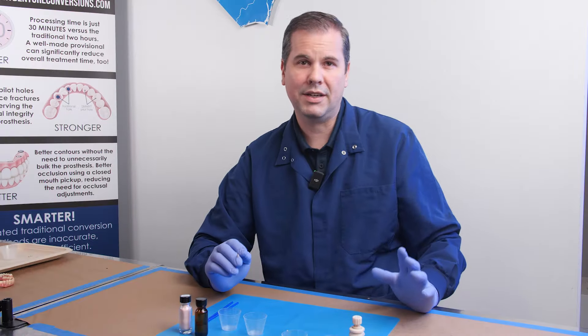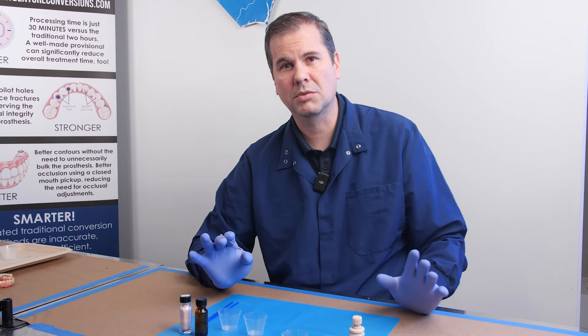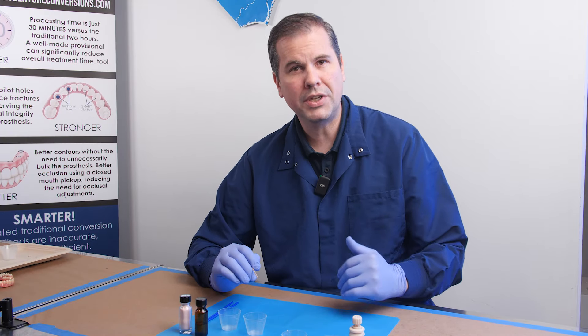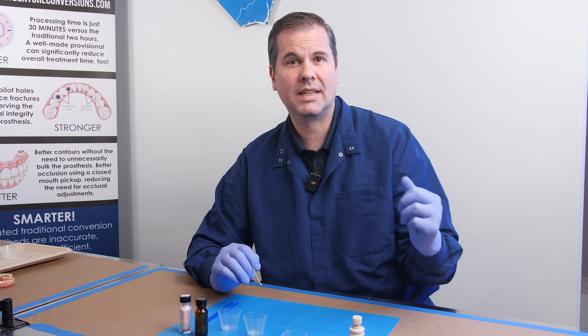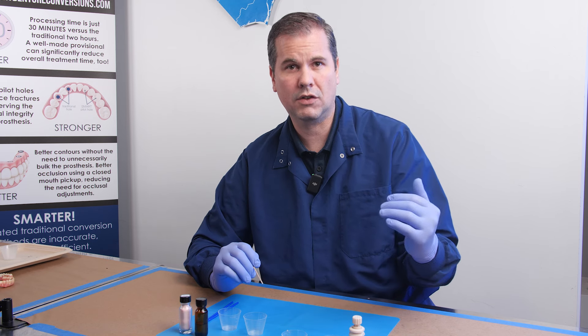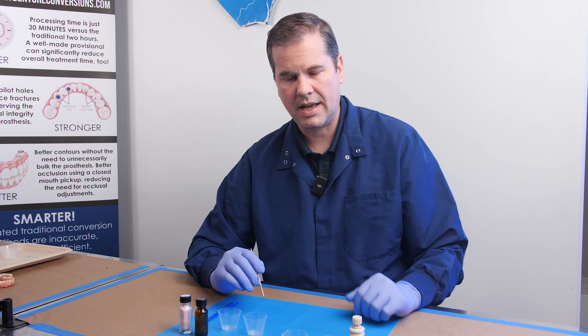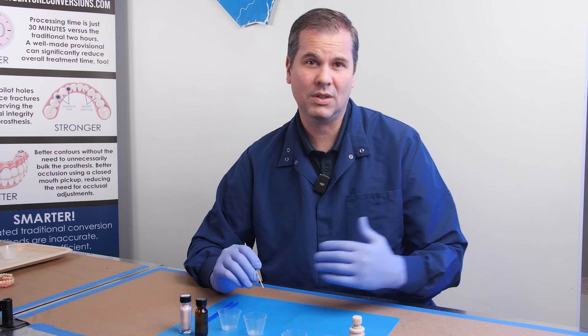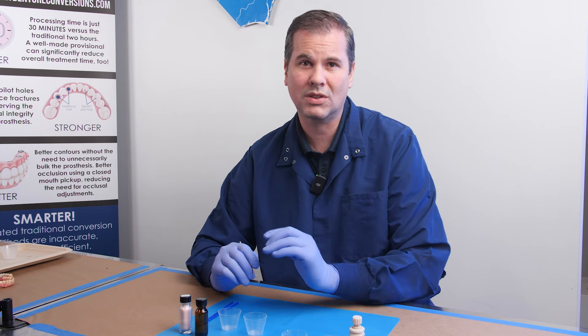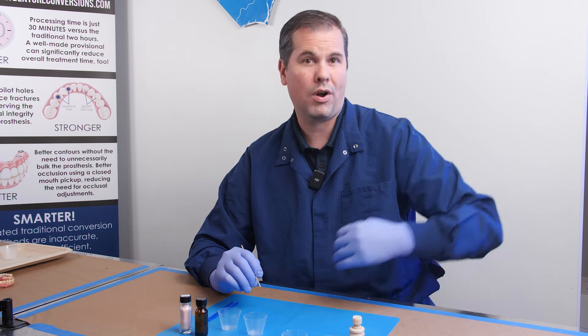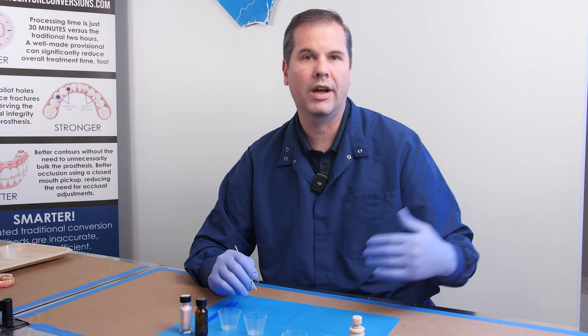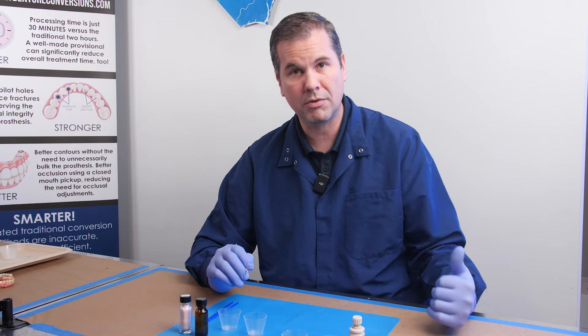The first step to smart denture conversions, and this is a non-negotiable step, is pre-coating the parts that are going to be picked up into the denture conversion. That is done well in advance of the procedure - not at the time of surgery, but a day before, a week before, a month before, a year before. It doesn't matter, but it's done before surgery.